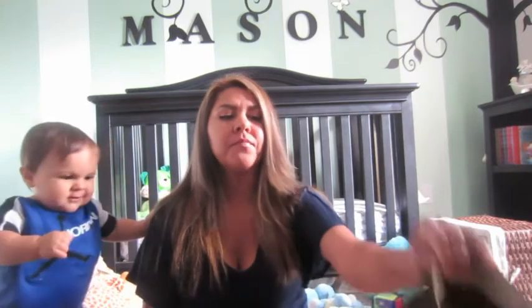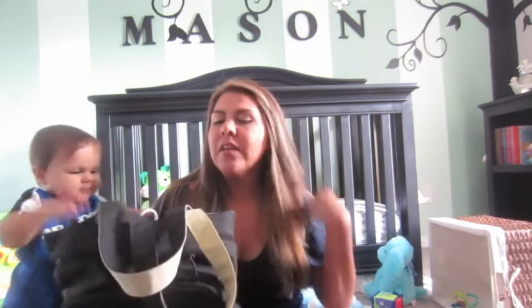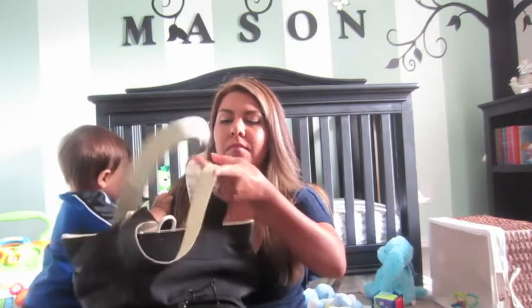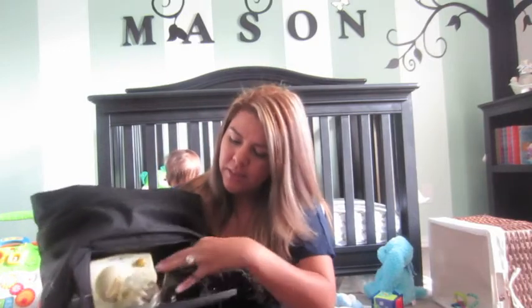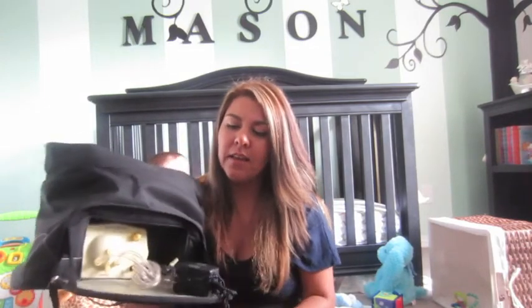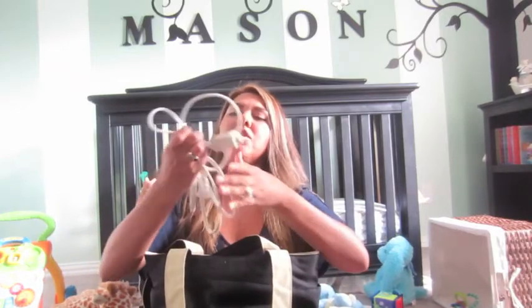Things that you will need are a breast pump. I use the Medela Pumpin Style Breast Pump. You have the option of getting it in a purse style, like what I've got, or you can also purchase it in a backpack style. In the front it's got the little tubes that you'll connect to these little guys. There's also an outlet and a little knob that lets you go from low, medium to high depending on how fast you want the suction. I also keep an extension cord in my breast pump bag because the outlet they provide is not long enough, and if you don't want to be two feet from the wall, I suggest keeping an extension cord.